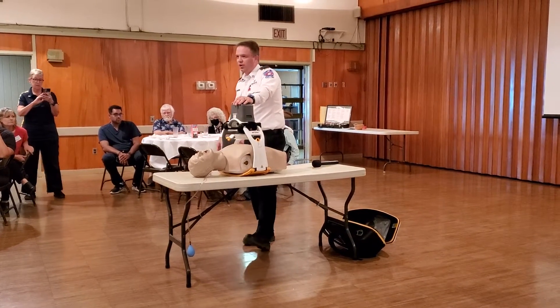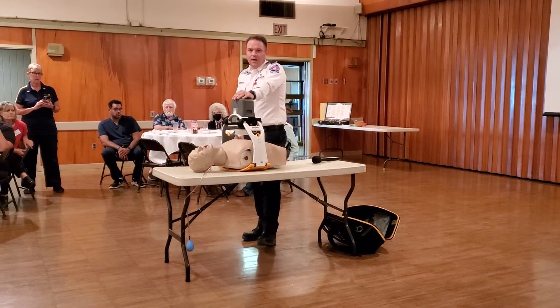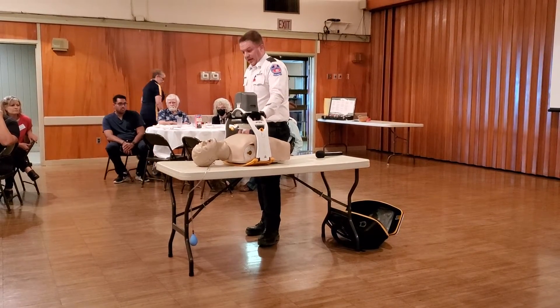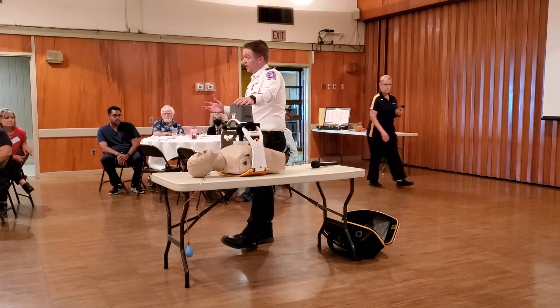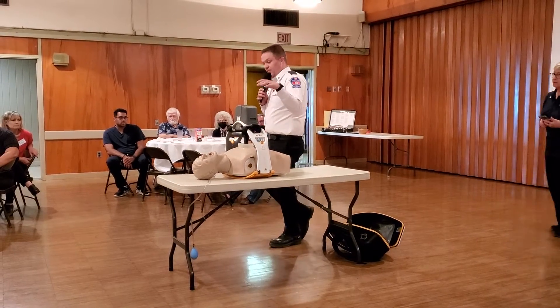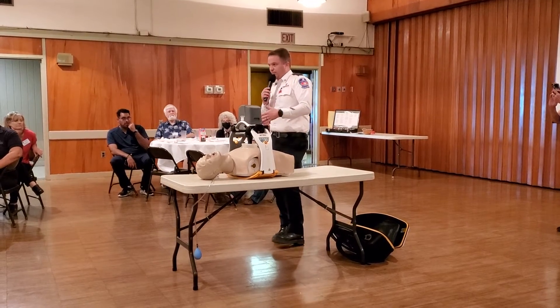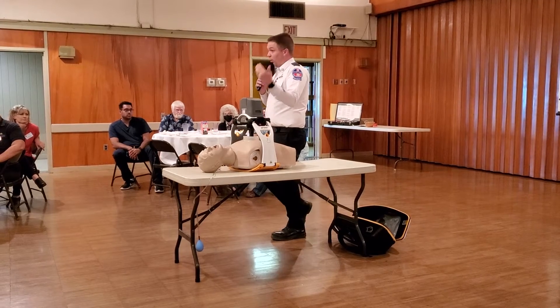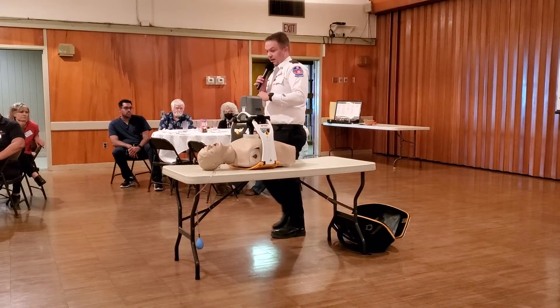There are a couple of settings on here. If I were to do an advanced airway, it will allow me to pause and deliver the airway during CPR. But basically it is going to do continuous CPR for as long as there's a battery in it, and we even have a plug-in adapter. The first setting is going to be 30:2 — 30 compressions to two ventilations. It's going to compress 30 times, give you a warning that it's going to stop, stop for five seconds, and then go again.